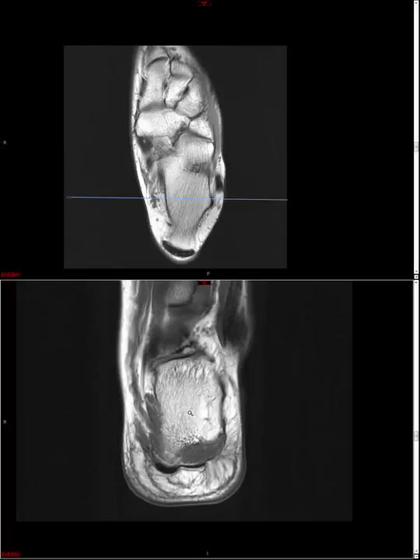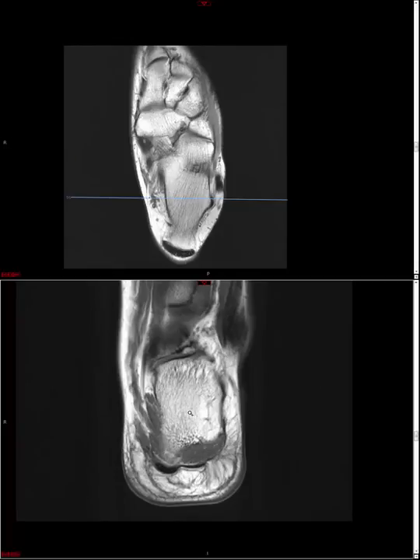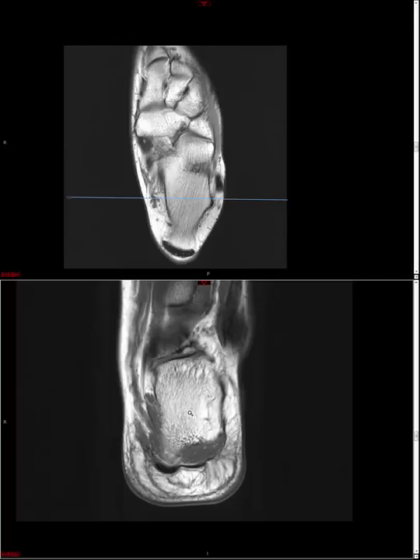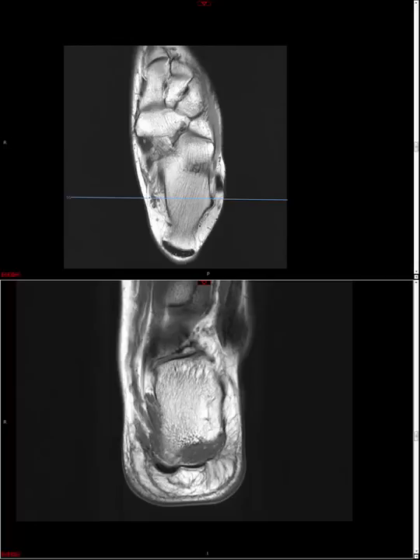That's the basic approach to ankle MRI. The key is just looking at a lot of cases, getting used to what's normal, what's within the realm of normal, and what's abnormal. I hope this has been helpful. Thank you for your attention.